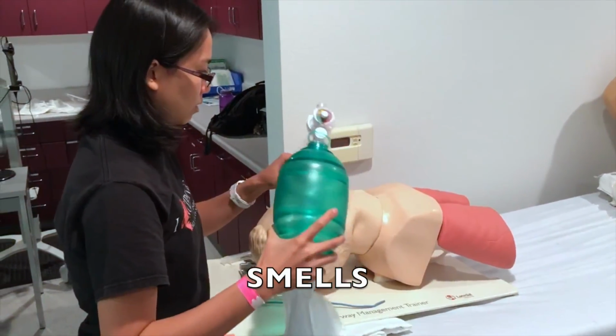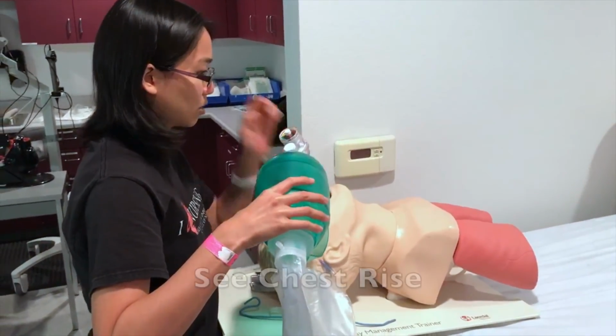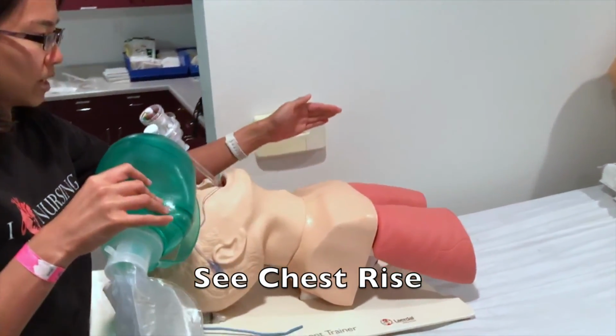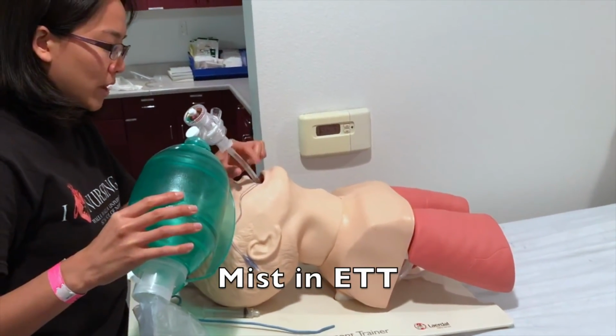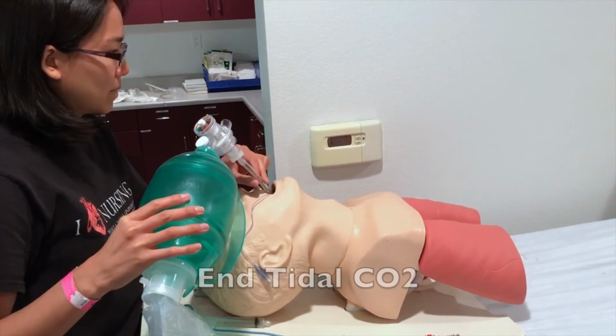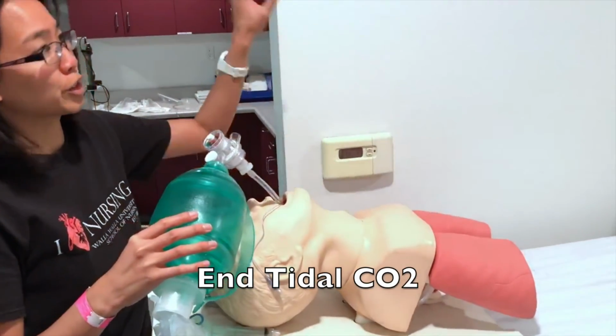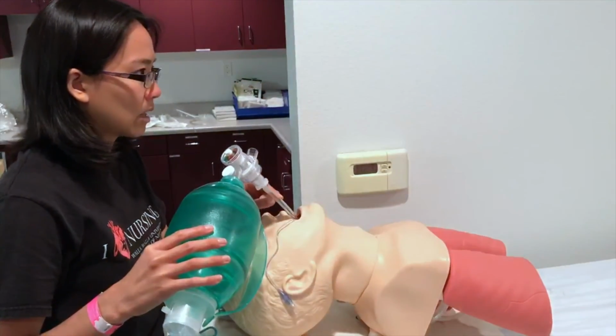Okay, so SMELLS. Basically, the first S stands for see chest rise. So as you inflate, you would see the chest rise. M stands for mist. When the patient exhales, there'll be mist in the ET tube. E stands for end tidal CO2. So on the monitor, you'll be able to see waveform and appropriate numbers.